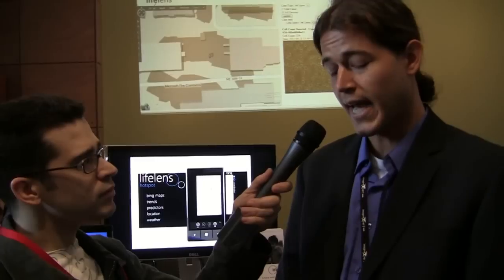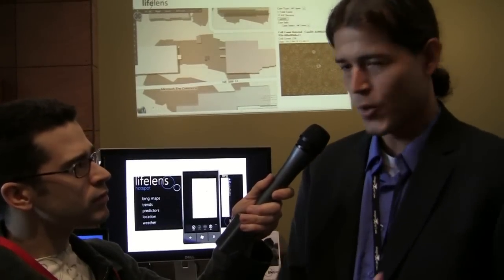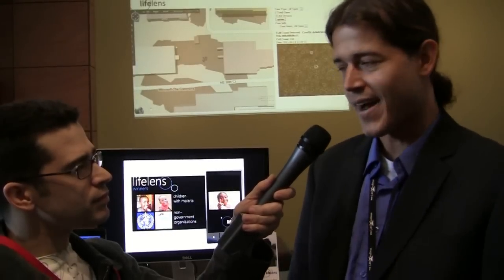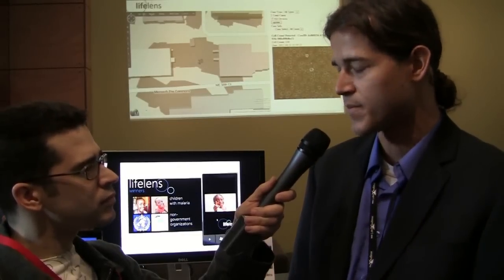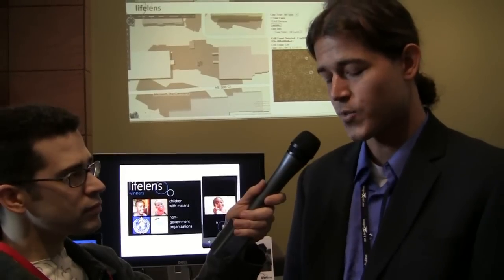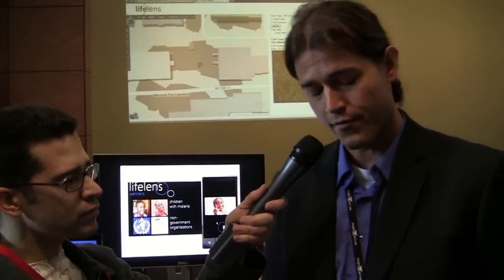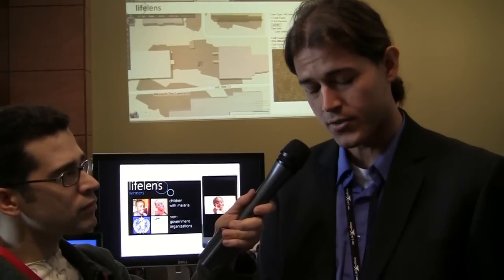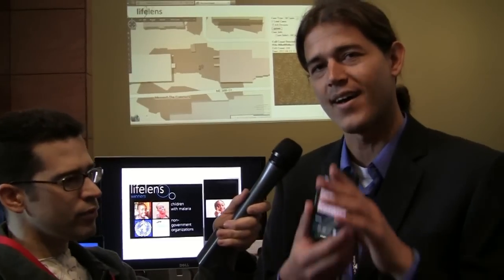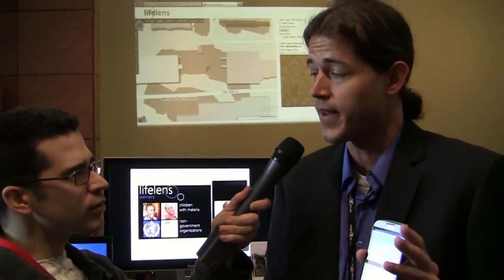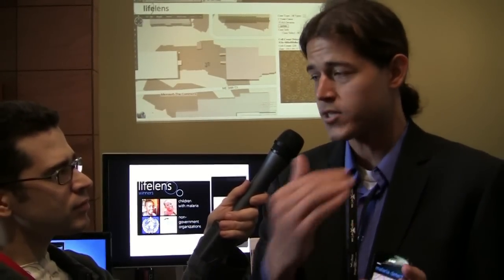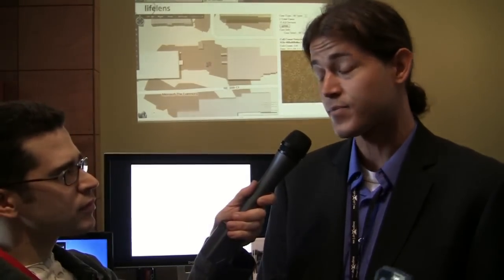Now, one of the first steps we have is that right now, to be able to diagnose malaria, you have to actually do a whole process, look through a microscope. It could be tiring to find everything that's in there. But we wanted to make it much faster. This way you can actually have a scanning type algorithm. So what we do here is we actually then go through the actual image, find out all the information about what's going on, and we actually count all the cells. So let me go and load it up here. We can easily find out everything that's going on. So I don't know if you can easily see, but there's two infected cells in here. So since we can find out where the cells are located, how many cells are in there, we can then say, let's see if I'm infected. So we go through each cell, we rate it, see if it's infected. And then from that, we actually gather the data.